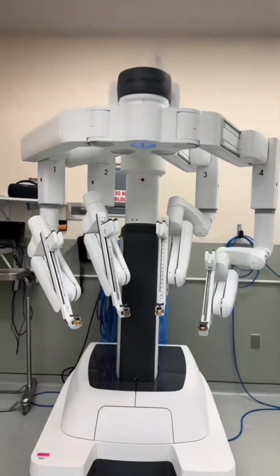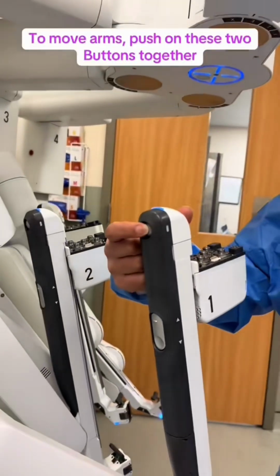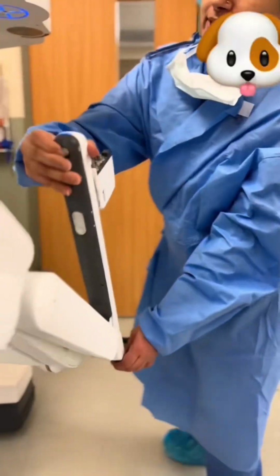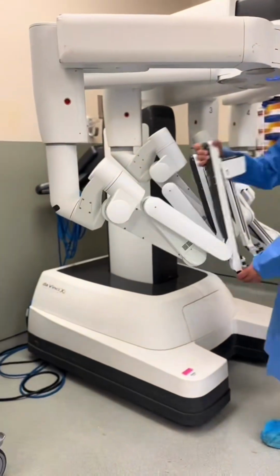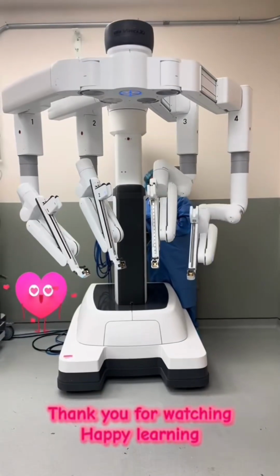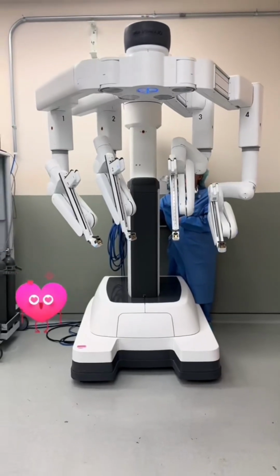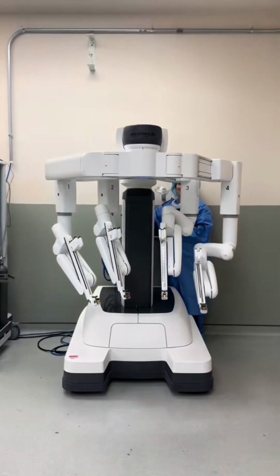Similarly, how to move the robotic arm. There are two buttons at the top and at the middle, as you can see in the video. Push on those two buttons at the same time and you can move the arm sideways or flex or extend the arm of the robot. After the surgery is done, click on stow to store the robot in its designated space or area. One more thing, there is a red button which is for emergency stop.